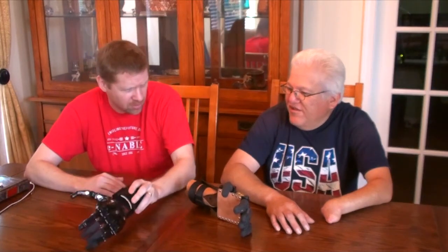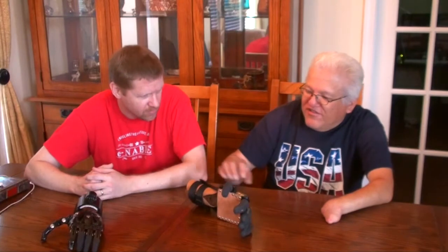Do you find that's a little less of an issue with the leather compared to the foam that was in the previous one, or is there any difference? That one — it's a little longer, so it covers a little more. But you are using it for about six hours on end.